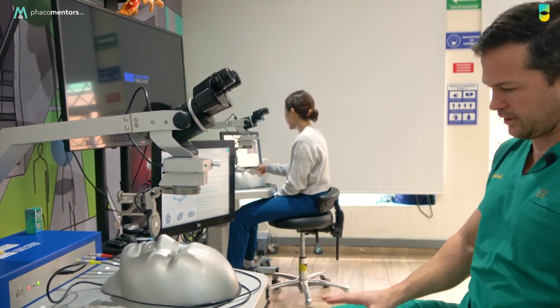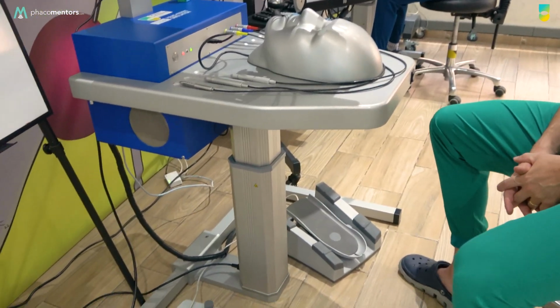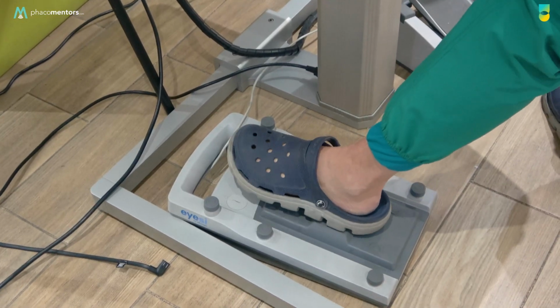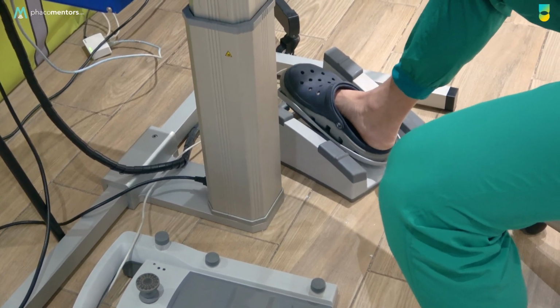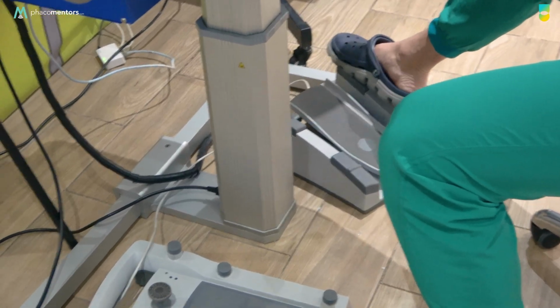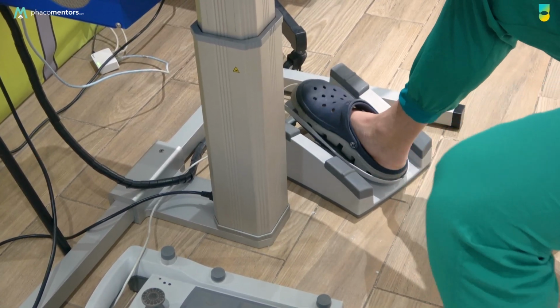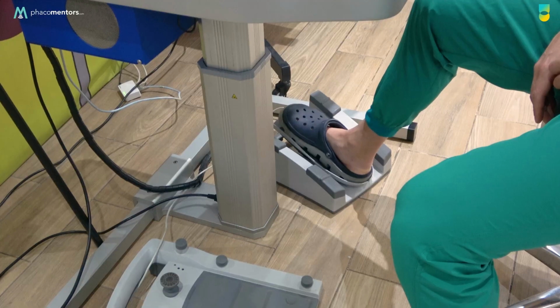Another important part of the hardware is going to be the two foot pedals. And as you know, we're going to have a microscope with 4 most important functions: focus, zoom, and an X and Y. And then you're going to have a Phaco machine with position 1, 2, and 3. And you're going to have lateral switches, for example, so you can go from sculpting to quadrant removal, or you can choose other functions. And in here, you're going to have reflux as well.